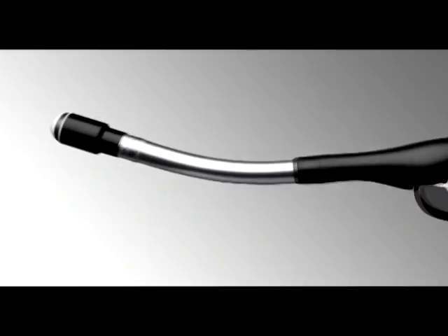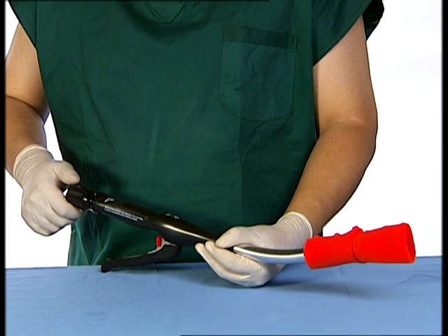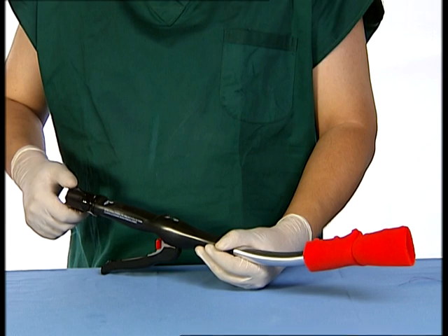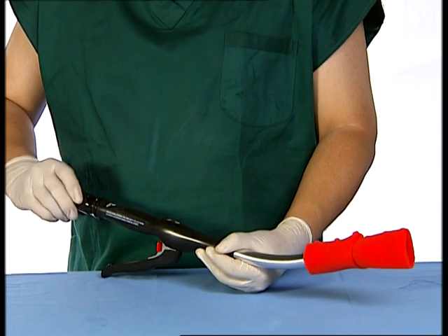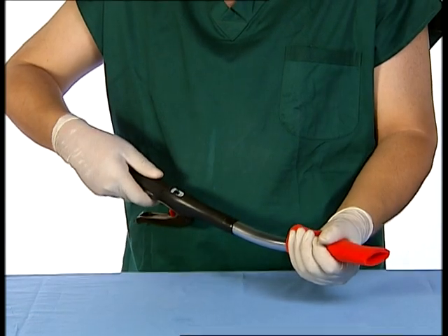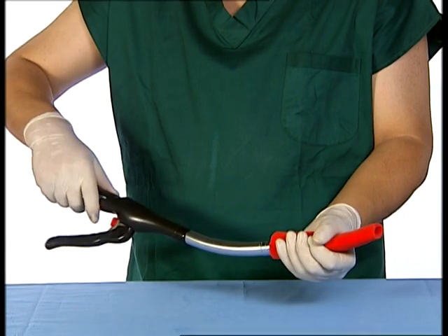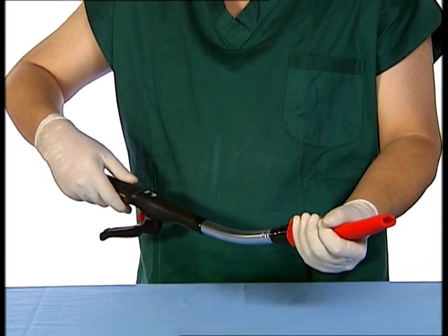For the Panther Healthcare circular stapler without tilt-top anvil, for easy removal, the instrument should be opened by turning the wingnut counter-clockwise one-half to three-quarter revolutions. To withdraw the open instrument, gently apply rearward traction while simultaneously employing reciprocal rotations through a 90-degree arc.